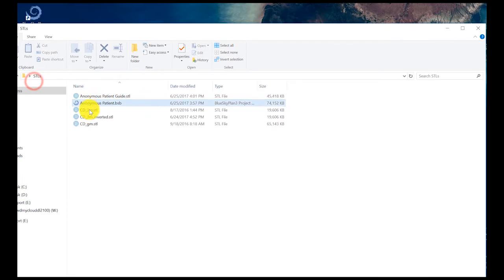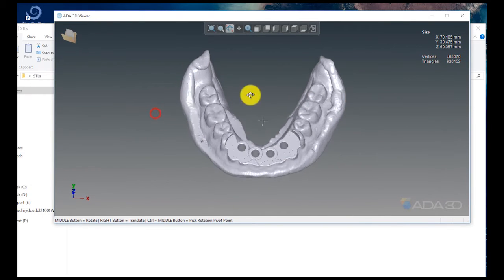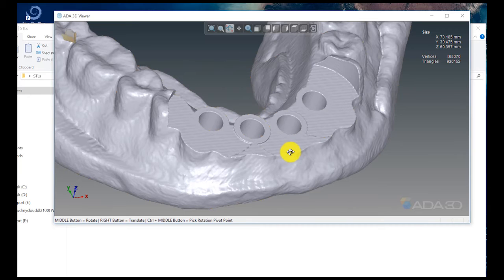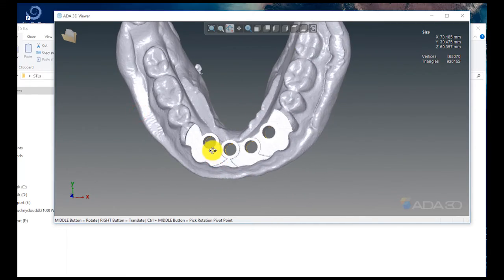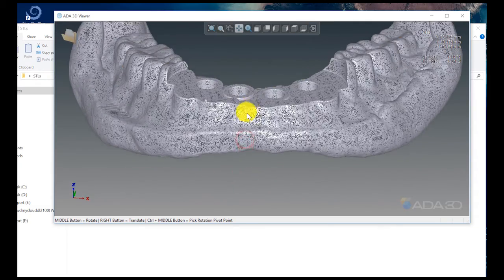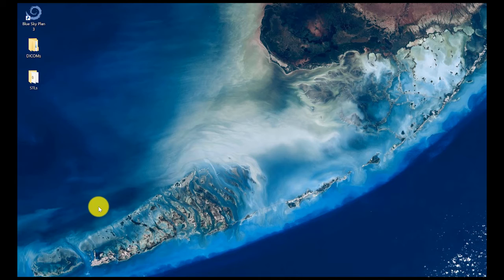I can minimize this, bring up my folder, and I can see the anonymous patient guide file. Double clicking it opens whichever software I have associated with viewing STL files. This can now be 3D printed using whichever 3D printer or technique you want to use. Those holes are going to correspond with my drill stops in the Lodi surgical kit, as will be described in our additional videos. This video has been a demonstration of utilizing Blue Sky Plan software to import multiple CBCT scans, merge the patient scan with the denture and radio opaque PVS scan, and create a surgical guide. This is Dr. Michael Scheer with Learn Lodi — thank you.